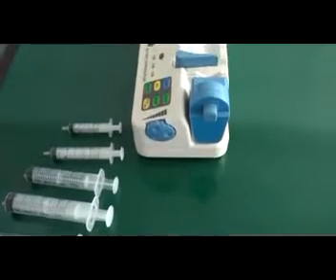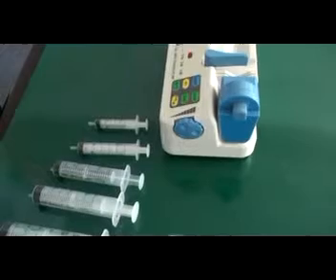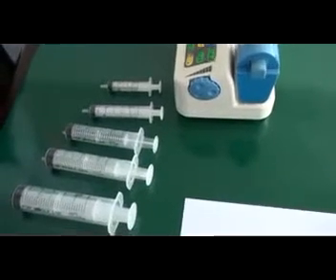I will show you how to change to a different brand of syringes. Step 1: Prepare a whole set of 5, 10, 20, 30, and 50 ml syringes of the brand you want to use in the future.